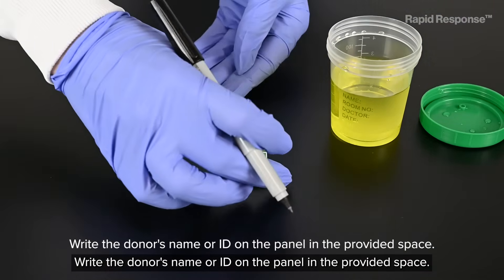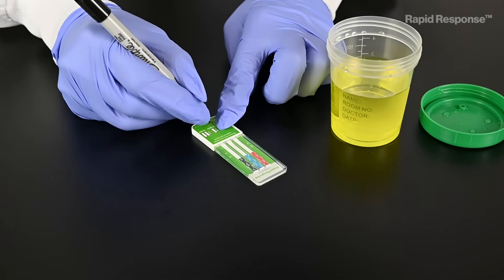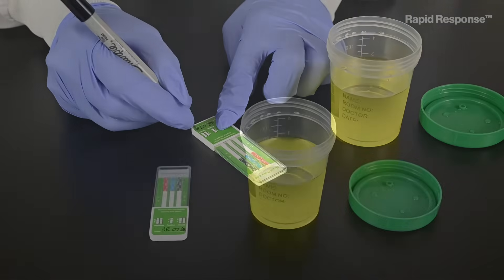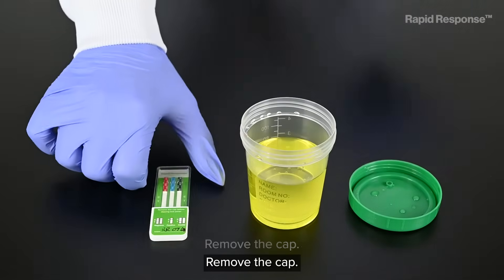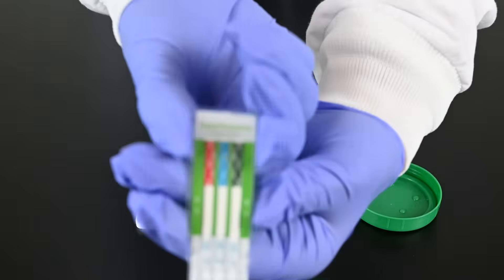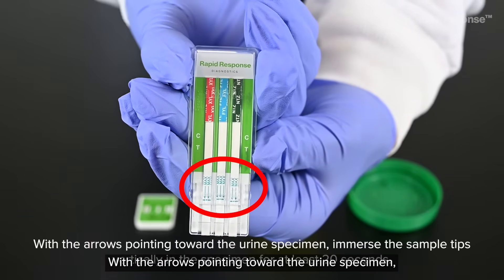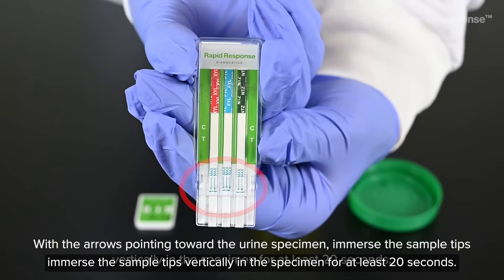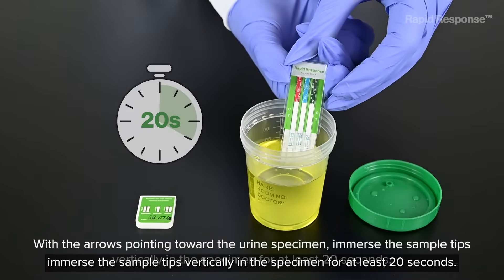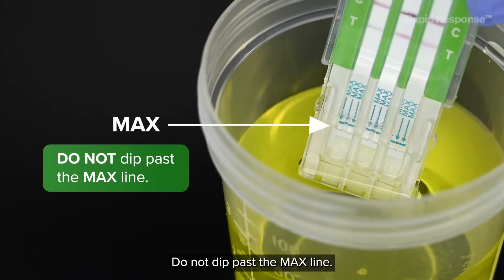Write the donor's name or ID on the panel in the provided space. Remove the cap. With the arrows pointing toward the urine specimen, immerse the sample tips vertically in the specimen for at least 20 seconds. Do not dip past the max line.